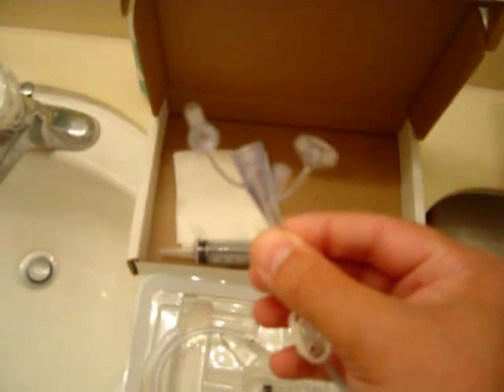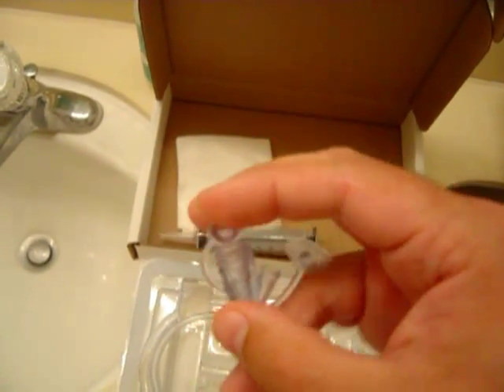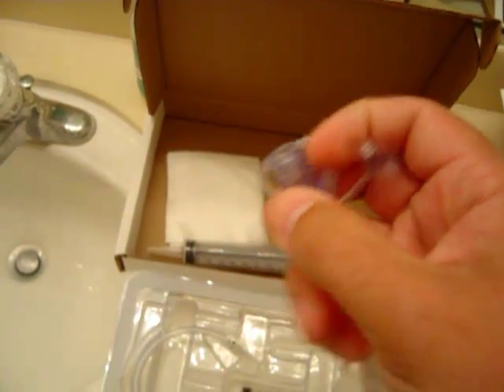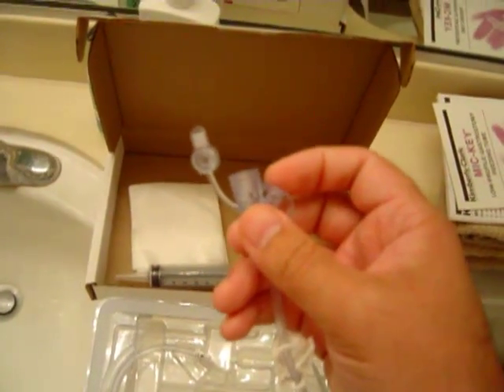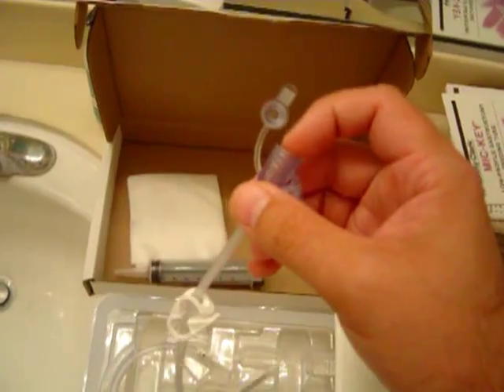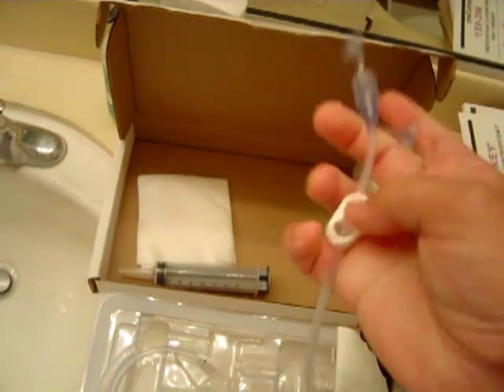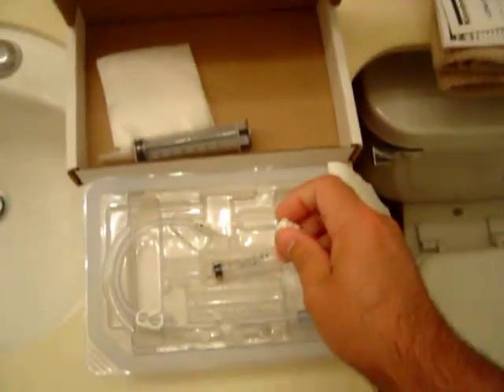This extension has a dual port — it hooks up to the button itself. It's got a large port for the cap-tip which can be plugged. For bolus feeding that port stays open and this one stays closed. You can also hook up a medication line — whatever else you're giving besides the feeding. You can pause the pump where the main lines go in and just inject something on the side, and it's got a clamp right there.